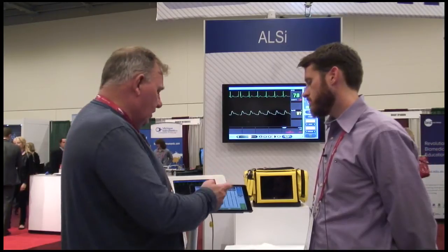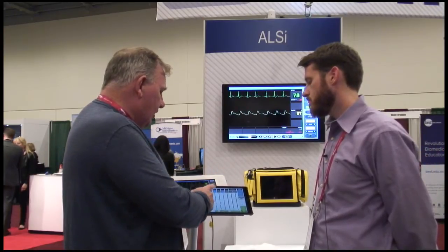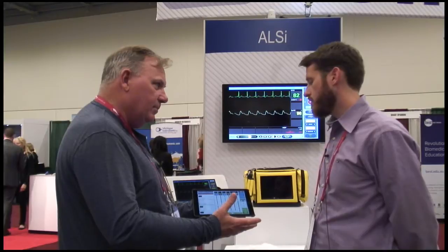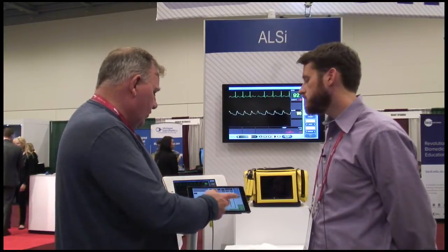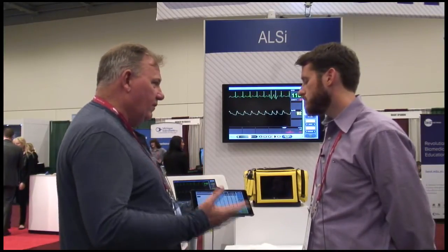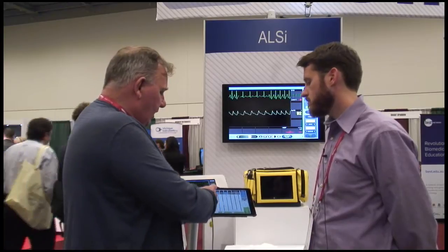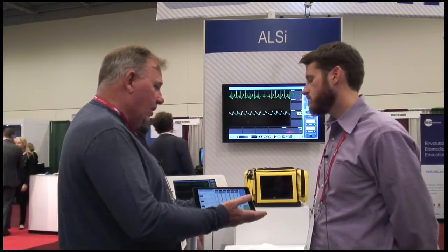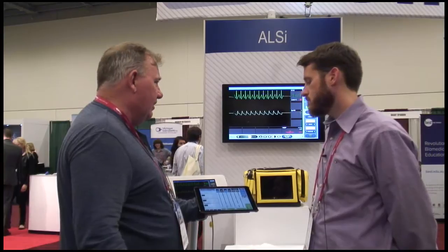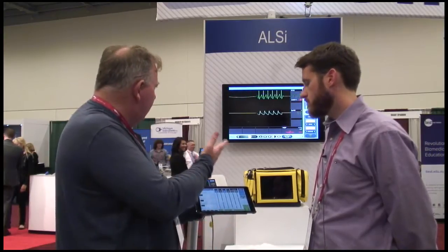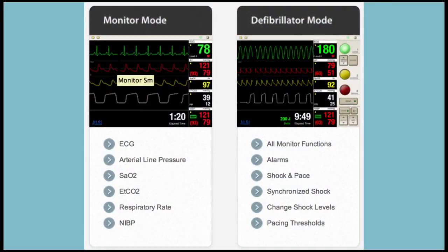We've now introduced timed events as well, not just trends like we had before. For instance, if we make the rate go really fast and we were going to give a drug like adenosine, we can build in a three-second change — a three-second period of asystole — with a delay before that takes place. Each box can now have a time, so you can run an automatic scenario: not just a length of time before that fully takes effect, but a delay before the process even begins.